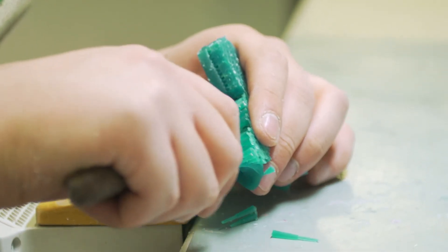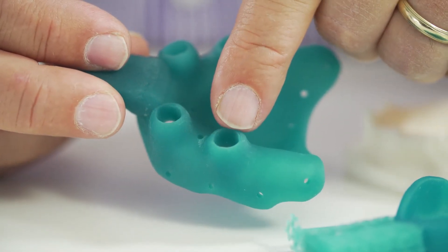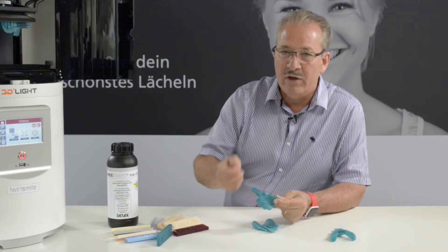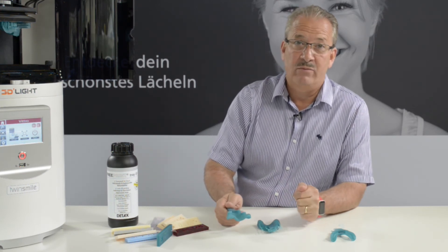The real advantages when you manufacture custom impression trays is that you can design anything you want if you have the right software. You can design chimneys like you see here for implant impressions. You can specify how much impression material you want in between — all of that you can do when you do it digitally. That's why in our lab we only print our trays nowadays and we don't do any conventional trays anymore.